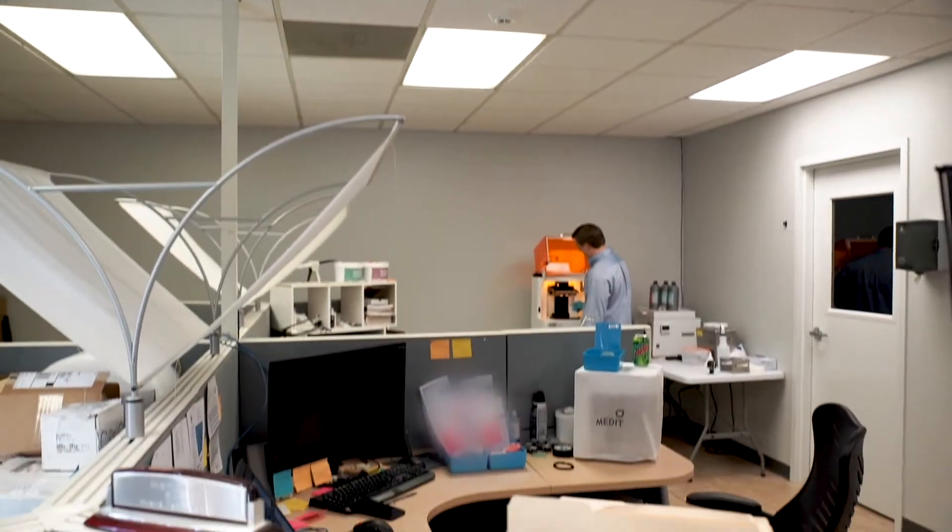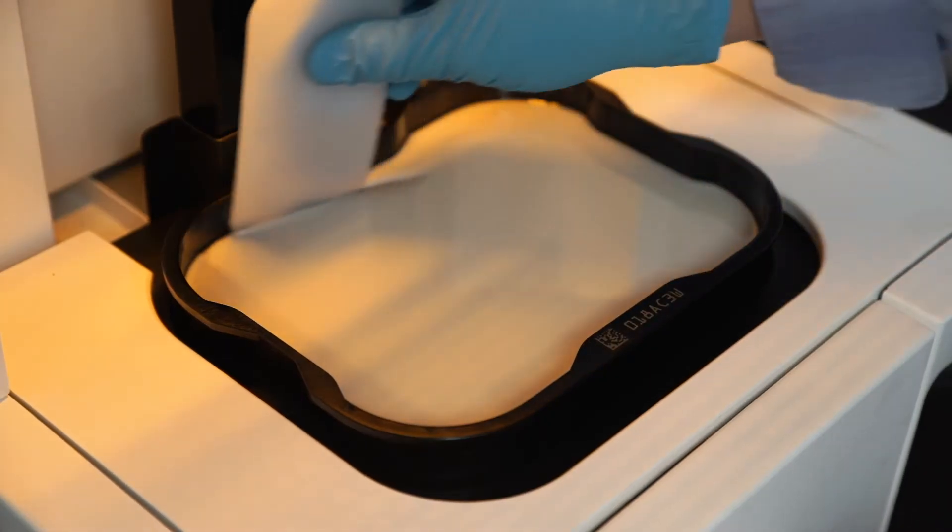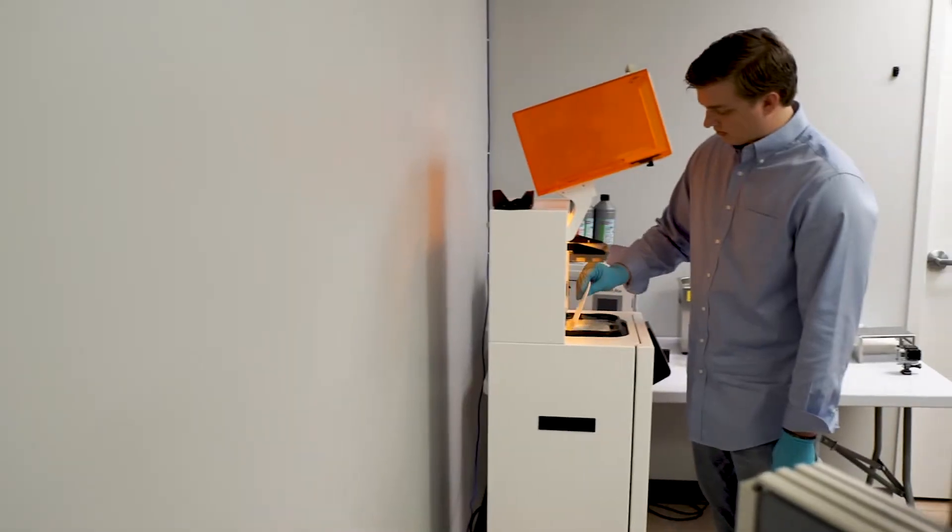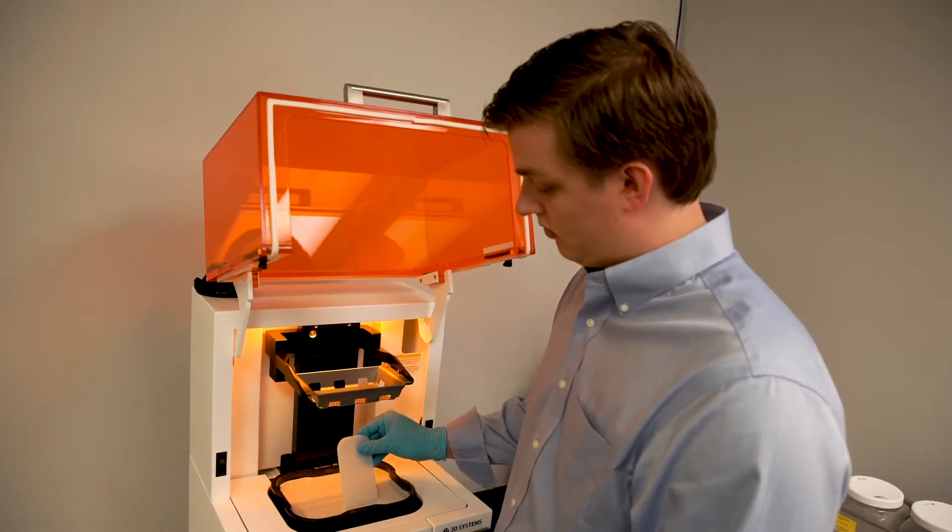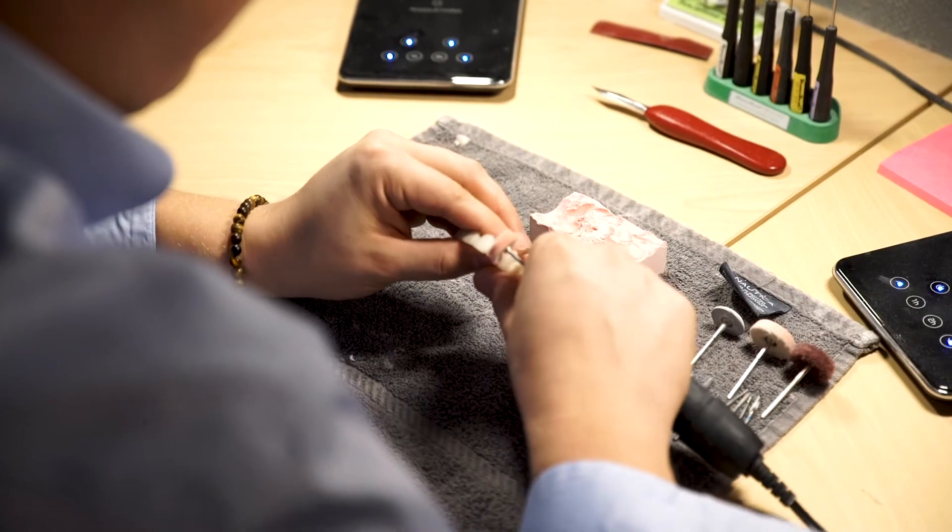With the Nexdent 5100 in the laboratory I can print the models, mill the crowns, sinter the crowns, all simultaneously. In a matter of two to three days my ceramist is already finishing the case, and that's a game changer.